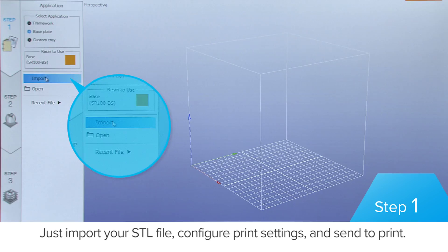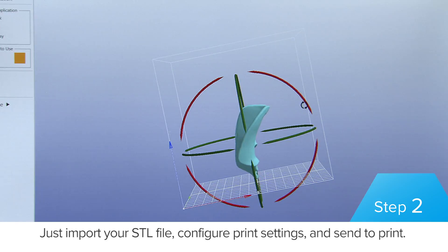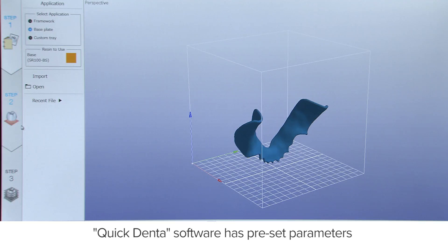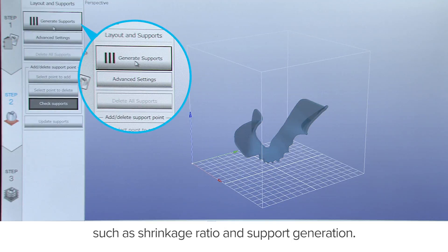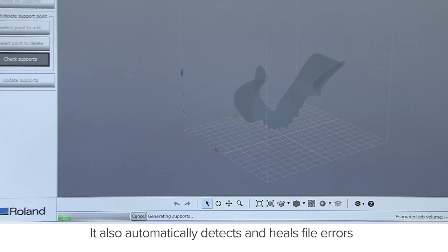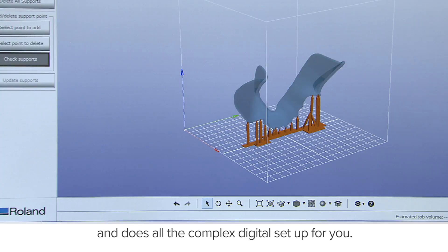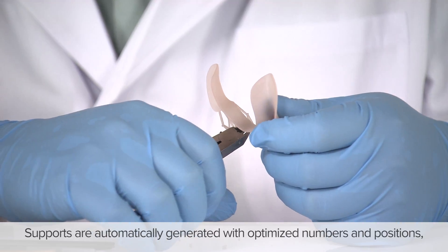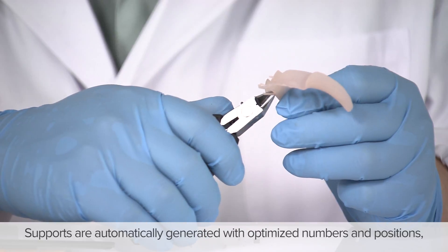Just import your STL file, configure print settings and send to print. QuickDenta software has preset parameters such as shrinkage ratio and support generation. It also automatically detects and heals file errors, and does all the complex digital setup for you. Supports are automatically generated with optimized numbers and positions.